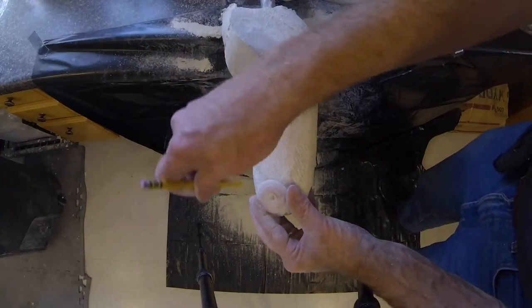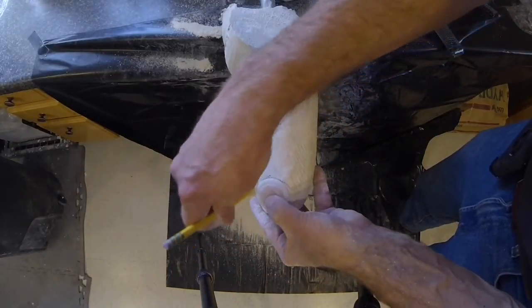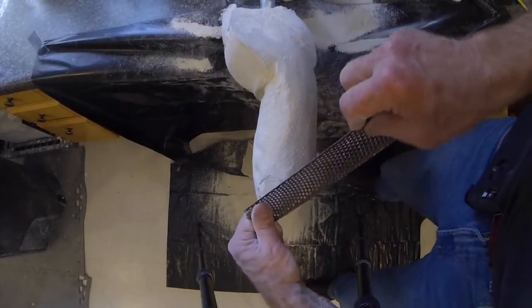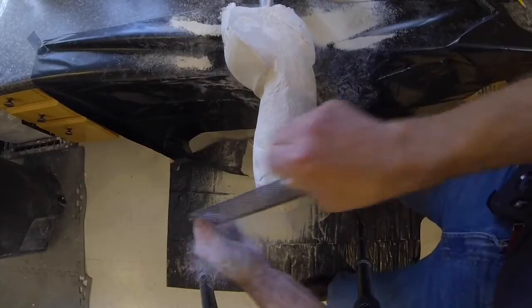If a valve will be used to facilitate donning by use of a donning sleeve, the area of the valve must be flattened as shown. The valve is placed anterior and medial, as far distal as possible, but still allowing easy access.